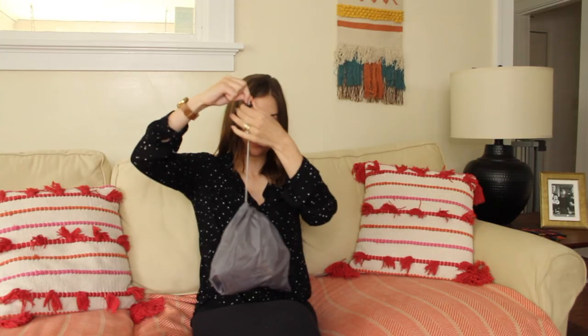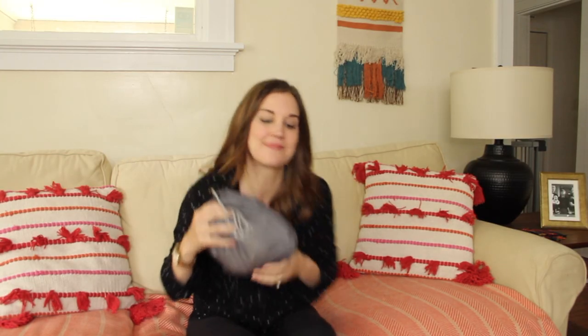The last thing I'll mention is that I found a lot of mamas had mixed reviews about the power of this pump. It's definitely not as strong as a hospital grade pump, but overall most moms were pleased with the power and especially the convenience and size. What I really liked about the Swing was the control I had over the suction, and the small size definitely made it easy to take on the go.